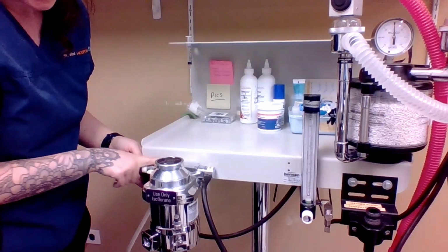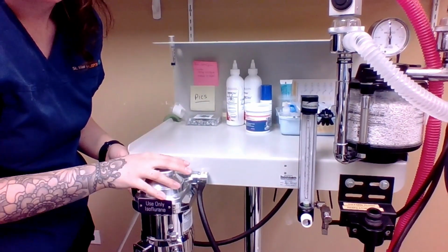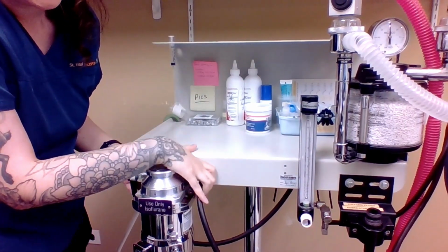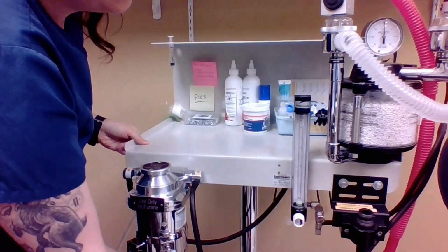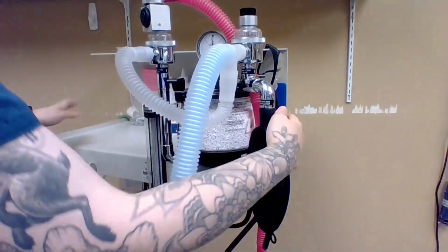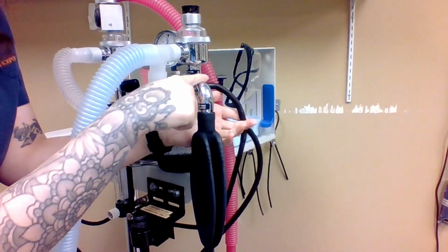This is the inlet part of it where it goes in, and then it goes through the vaporizer and combines with the isoflurane, and then out through our outlets. This is our outlet cord, and we're going to follow that up and around. And this goes through the inspiratory limb of our machine, so it just connects back here.